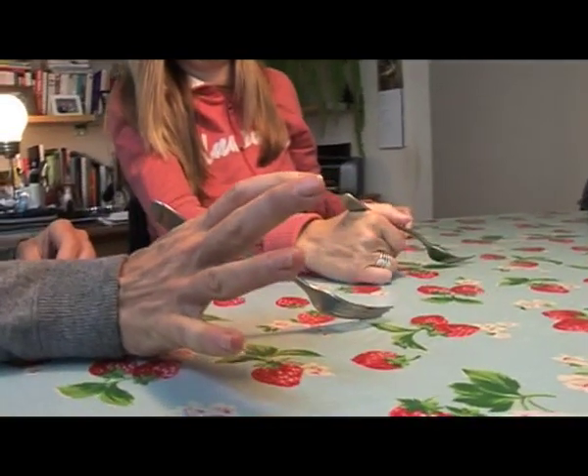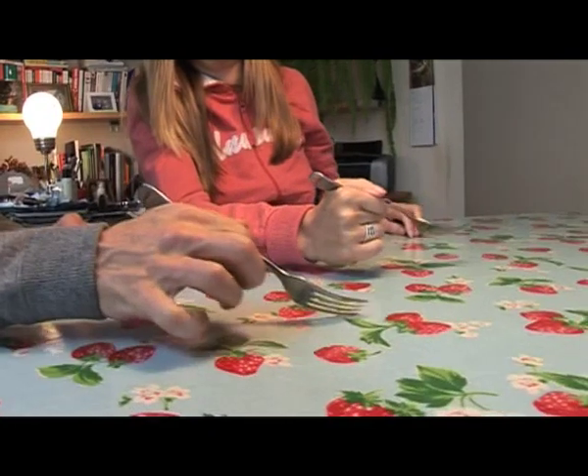It does feel like it is me gripping it, with an aid — but if it goes wrong, it's the blooming free hand system not working properly, and it's obviously not me.